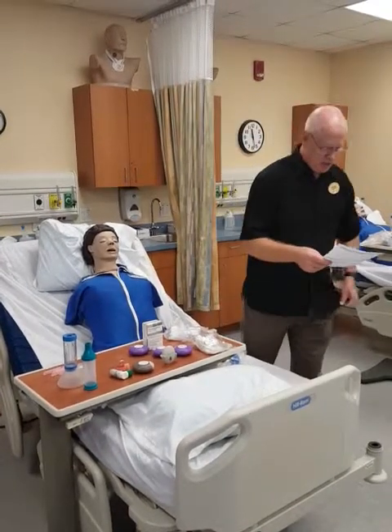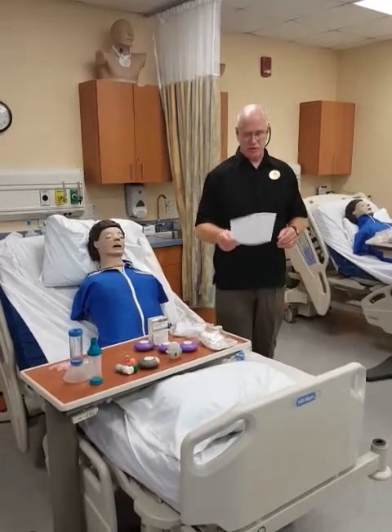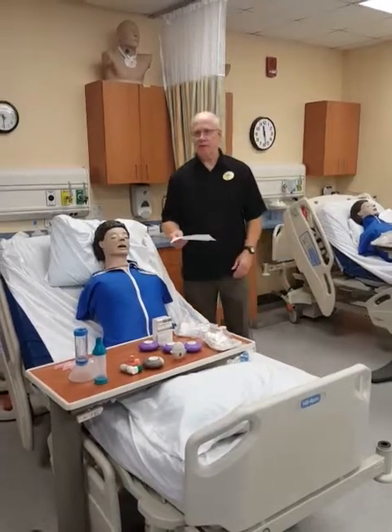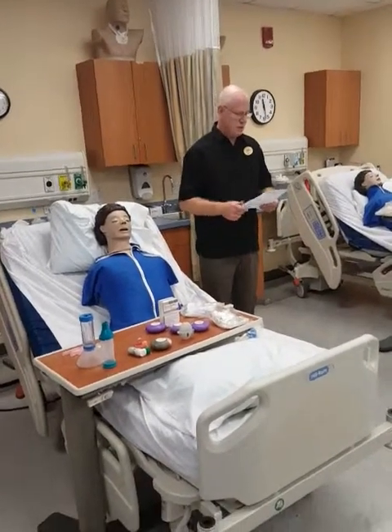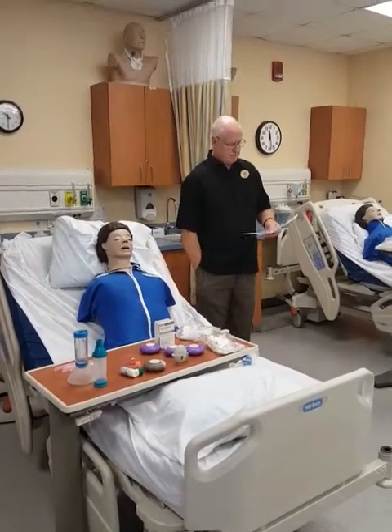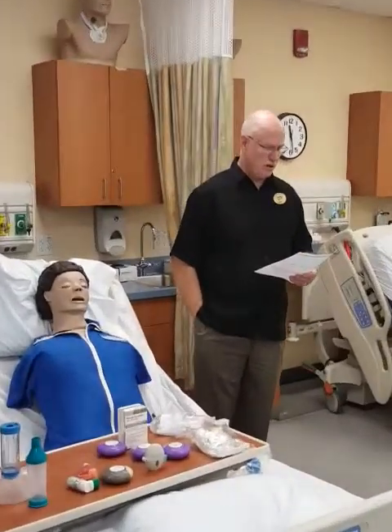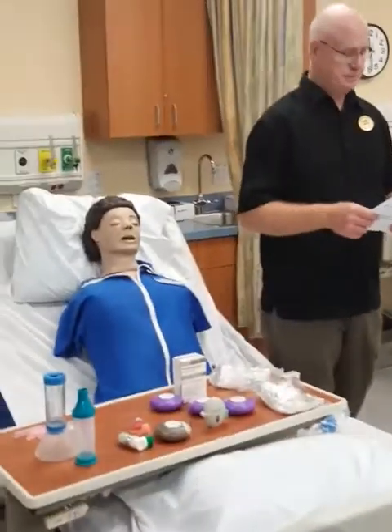This practicum looks lengthy, but really it's only five different things in the room — not really that much. Anyway, this is all about aerosol therapy.